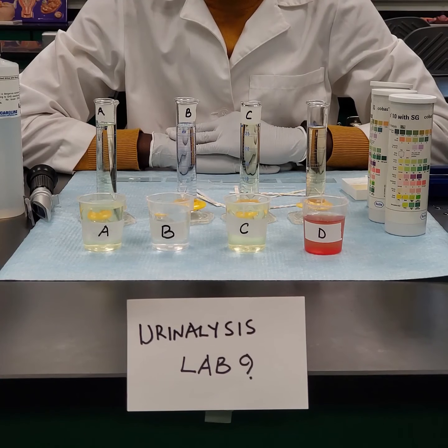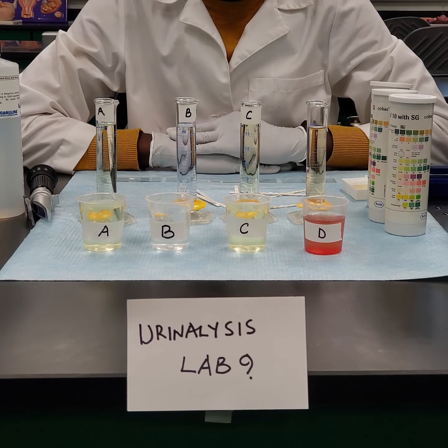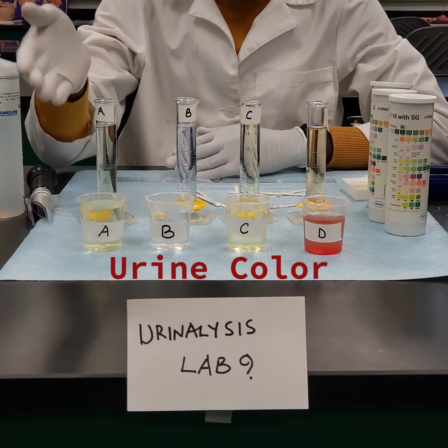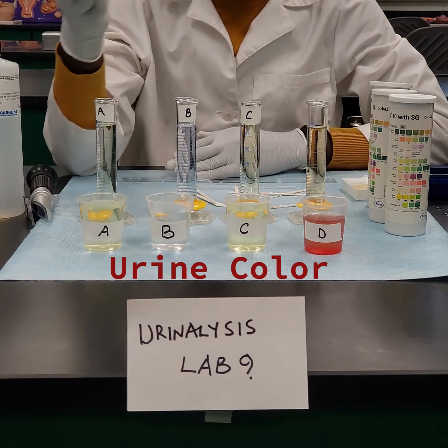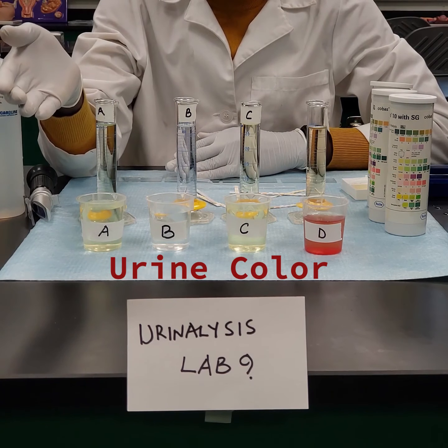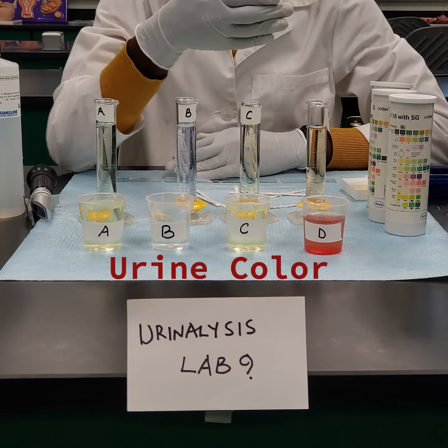Urinalysis. Urine is usually the end product of kidney function, and in this experiment we're going to look at how to diagnose a human being by using the urine sample. So the first part of urinalysis is to look at the color of the urine. We have samples A to D, and you're expected to look at the colors and record your findings. The color is very significant in terms of diagnosing if somebody is healthy or not.